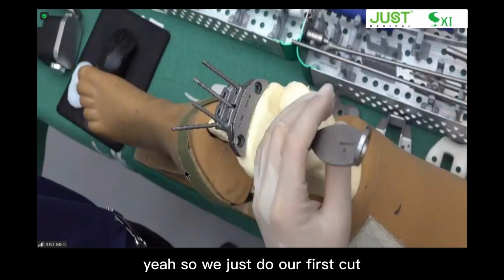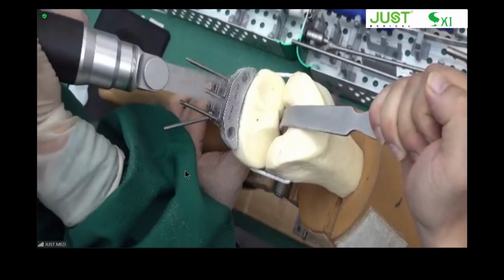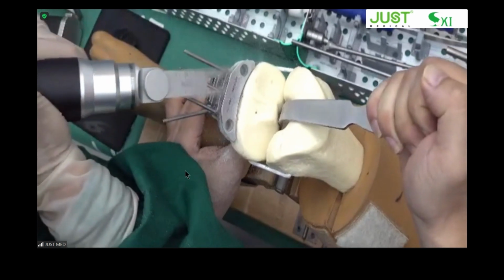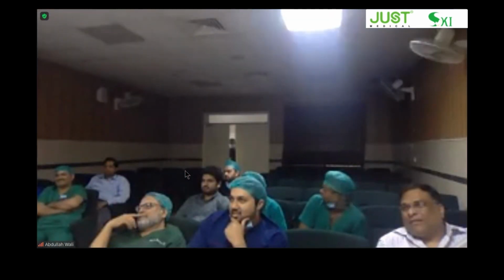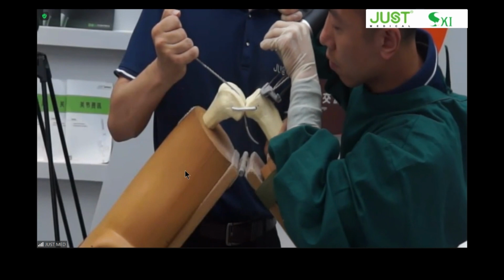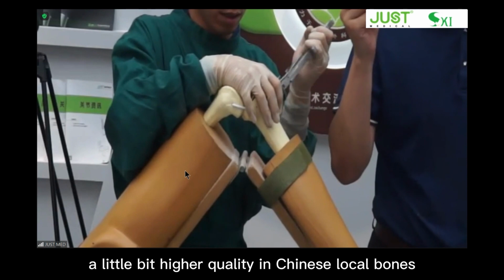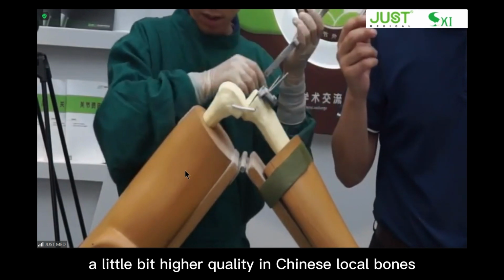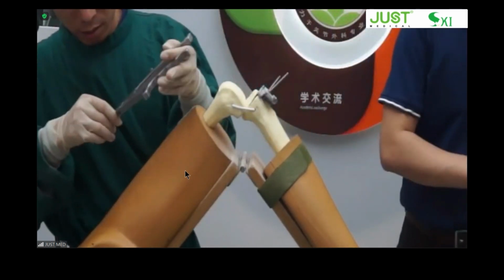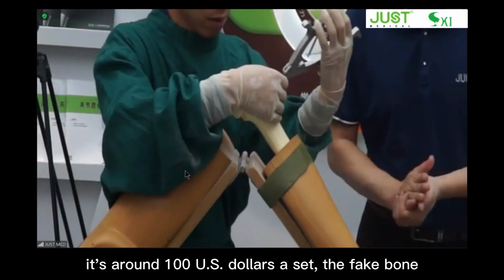Yeah, so we just do our first cut. It's a sawbone imported from the US. Why not Chinese sawbones? Because that's better. That feels better. A little bit higher quality than Chinese local bones. It's around $100 a set, the fake bone.